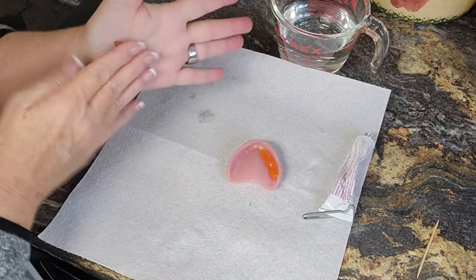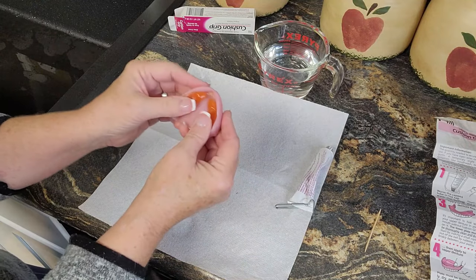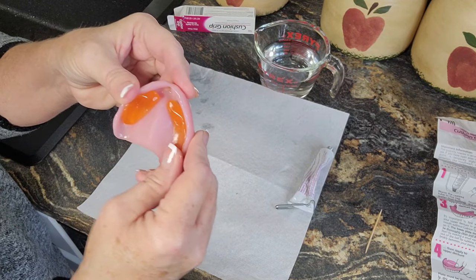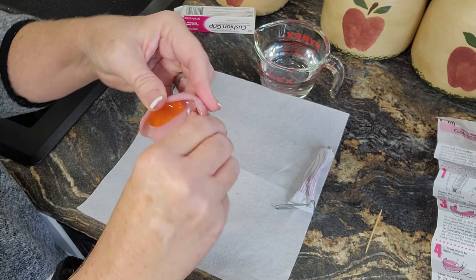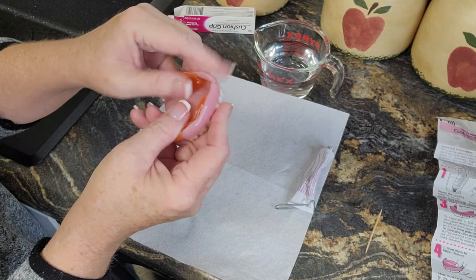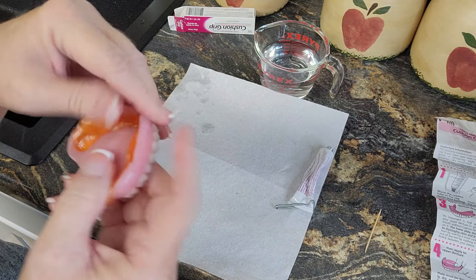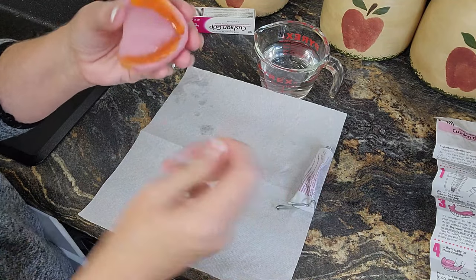What we want to do is put that in there, but you want it to go up on the edge of the denture — as high as you can get it. I'll probably have to put some more in there. See how high on this ridge I'm getting it? Because doing that is going to create a seal. If you have to, use a toothpick.